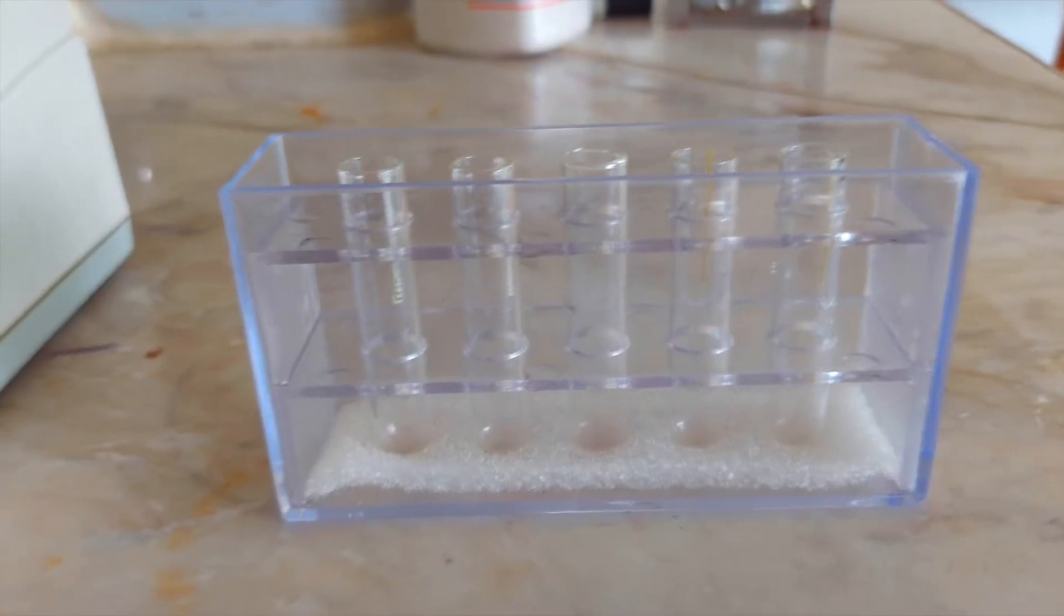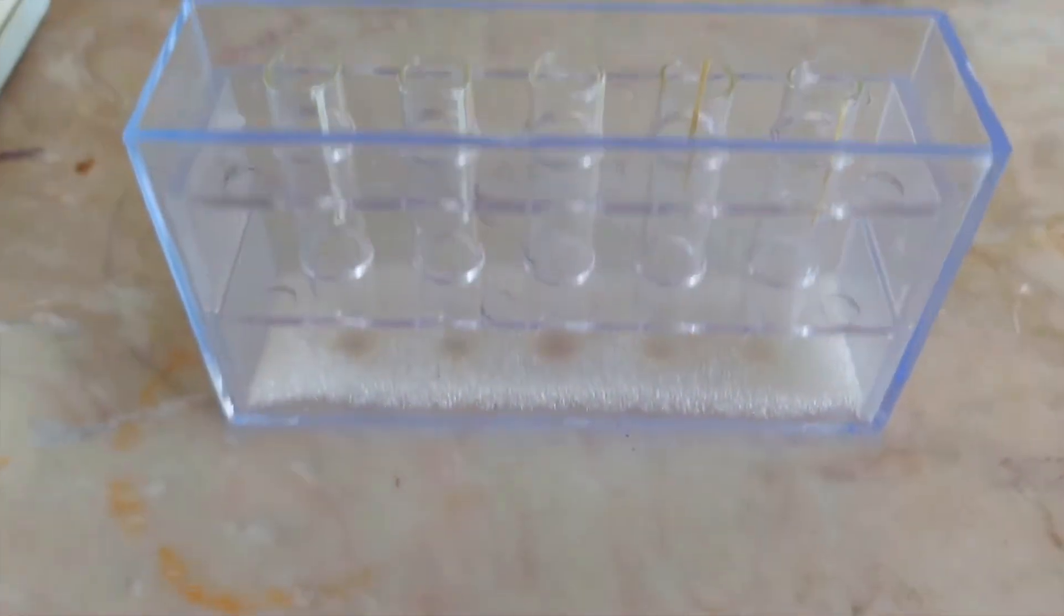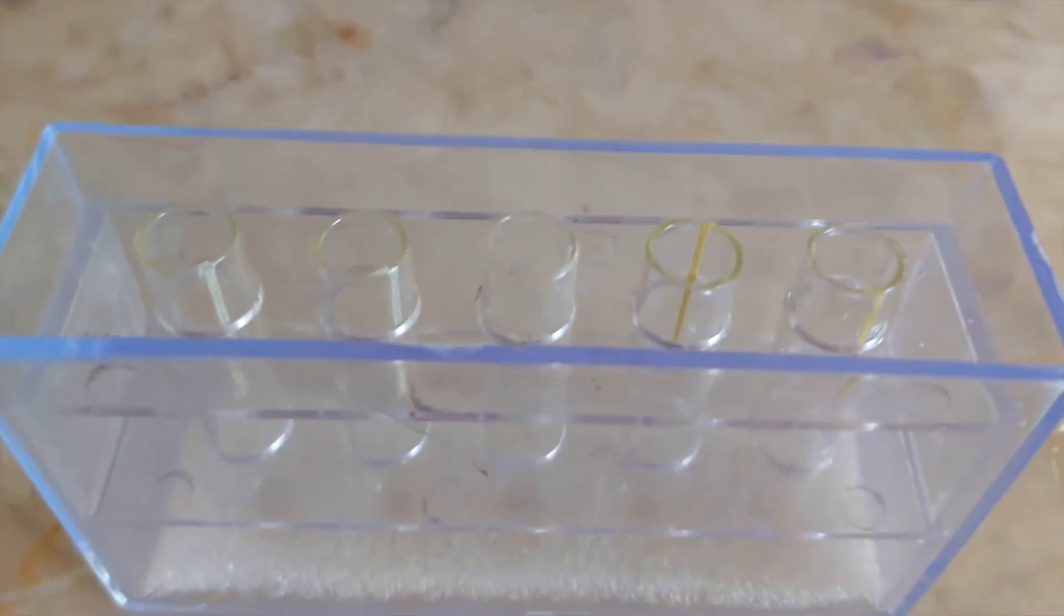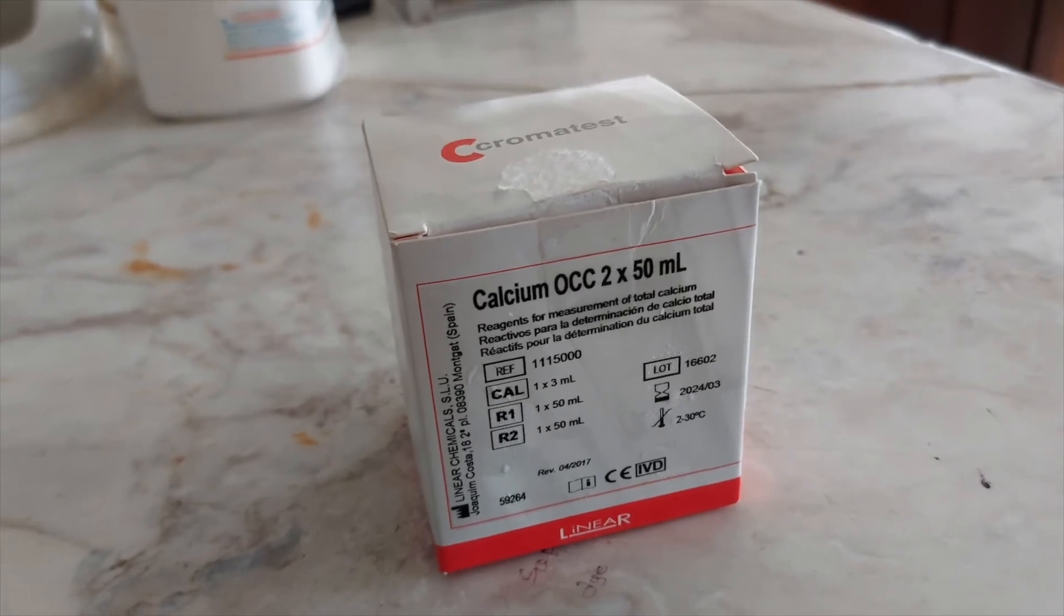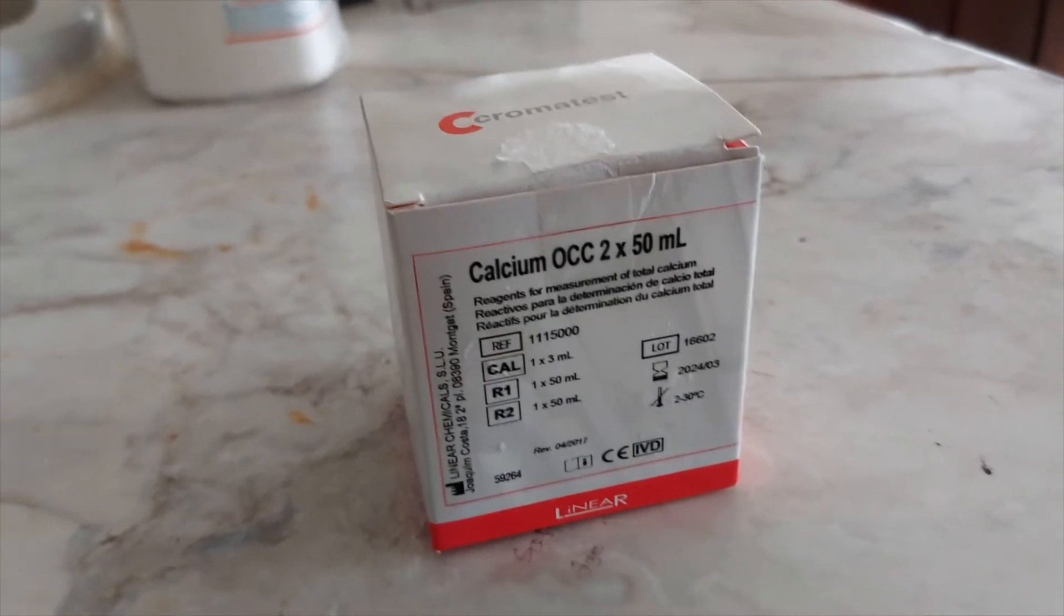These are the cuvettes or test tubes that came with the machine, and this is the reagent kit that we got.